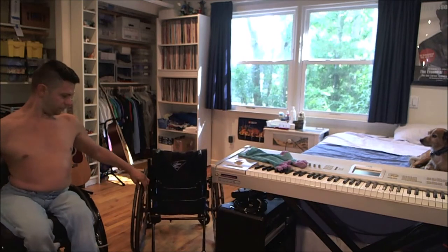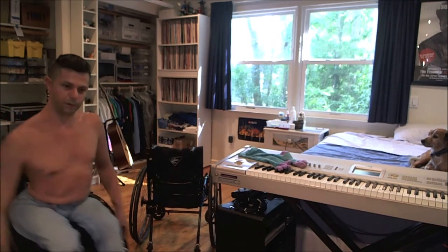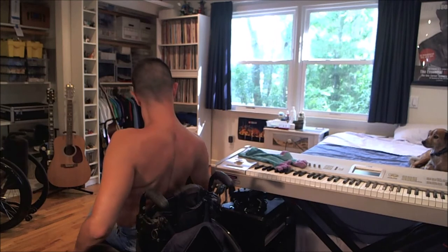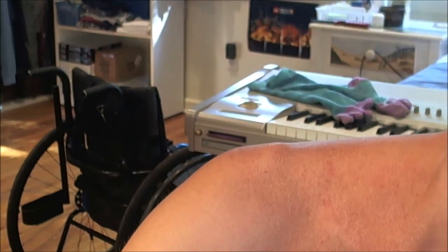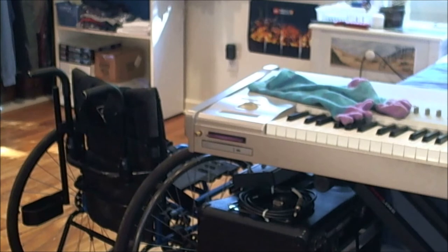Rigid frame. I'm not sure if you can see in the back but there was a little holder here - I think this was from my crutches but I'm honestly not sure. Let me look real quick - yeah you can't really see what's up against the wheel there. Okay, yeah there it is right there. I had a different kind of tip wheels too, I'll zoom out a little bit so you can see those.